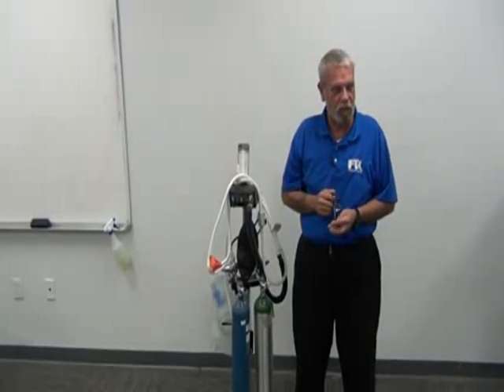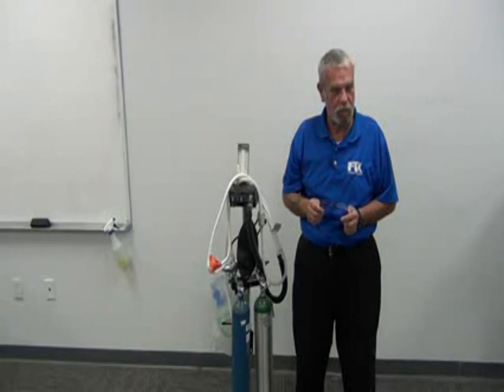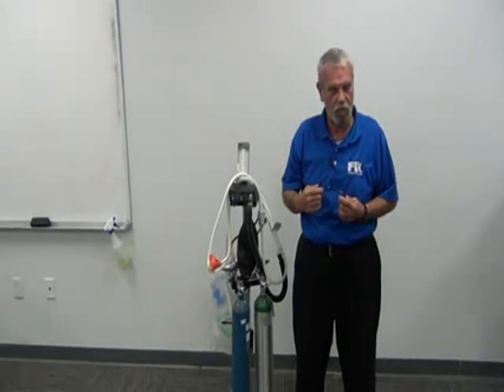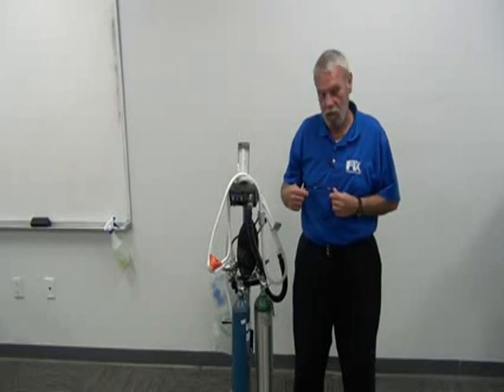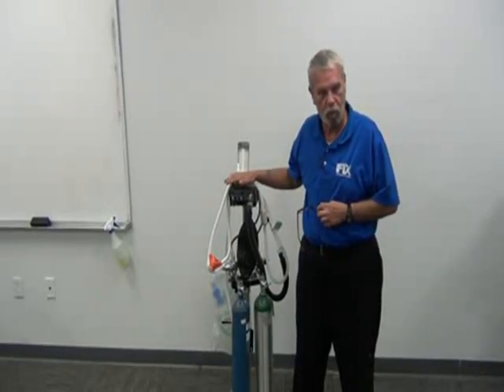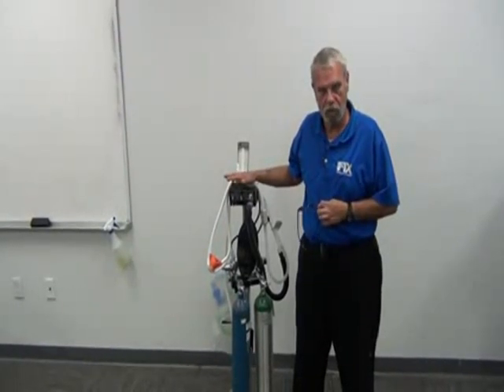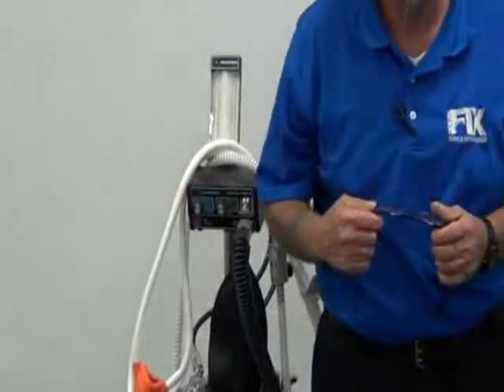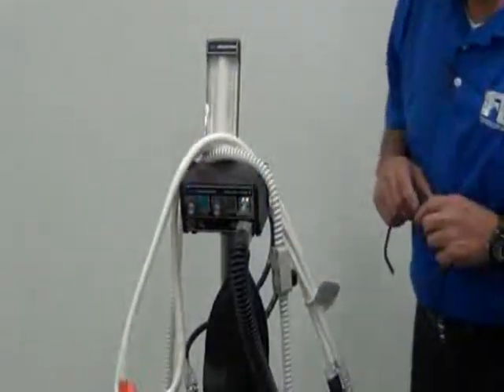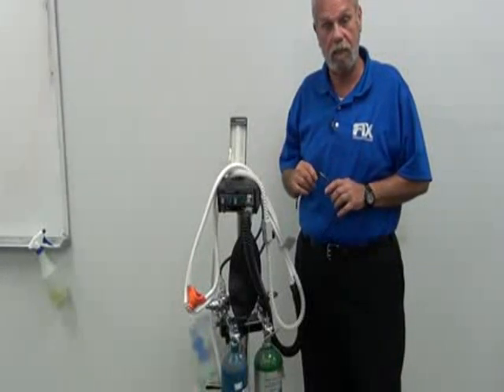Hi, we're here today to talk about nitrous oxide, the way it's applied to the patient, the indications it has for the office, the indications for the patient, and to familiarize ourselves with machinery such as the flow meters, the tubings, and etc., and their purpose in some brief terminology so you can talk to the doctors with a somewhat educated format. I'm sure we've all had nitrous oxide administered to us during routine dental procedures.